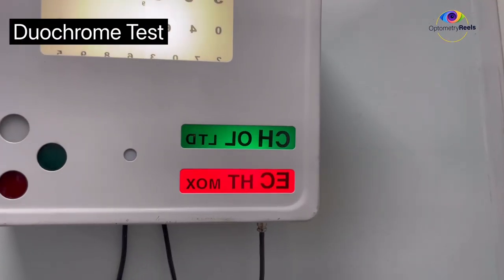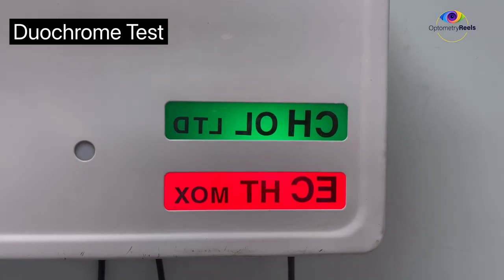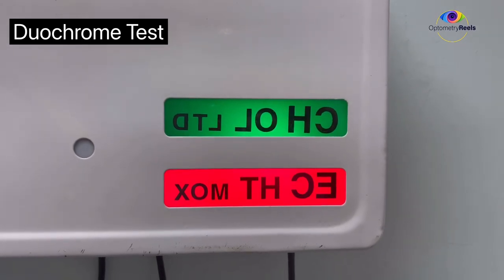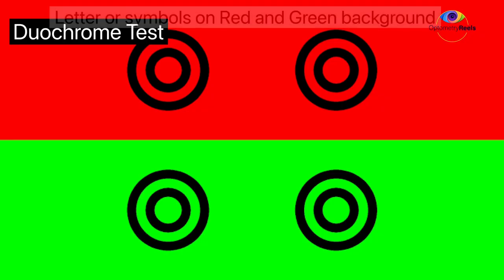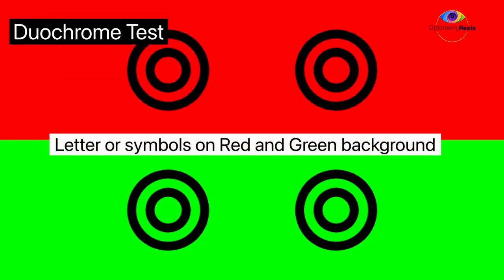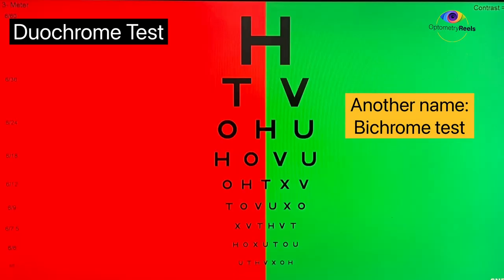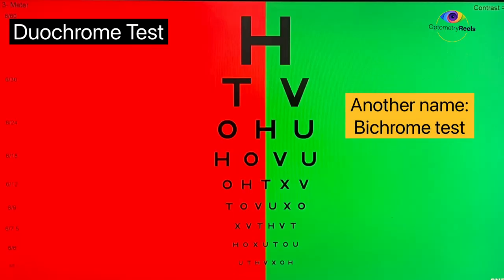The Duochrome test consists of a Duochrome chart which uses a distance acuity chart with black letters or symbols on a green and red background. This test is also known as the bichrome test, and it is usually done for distance.